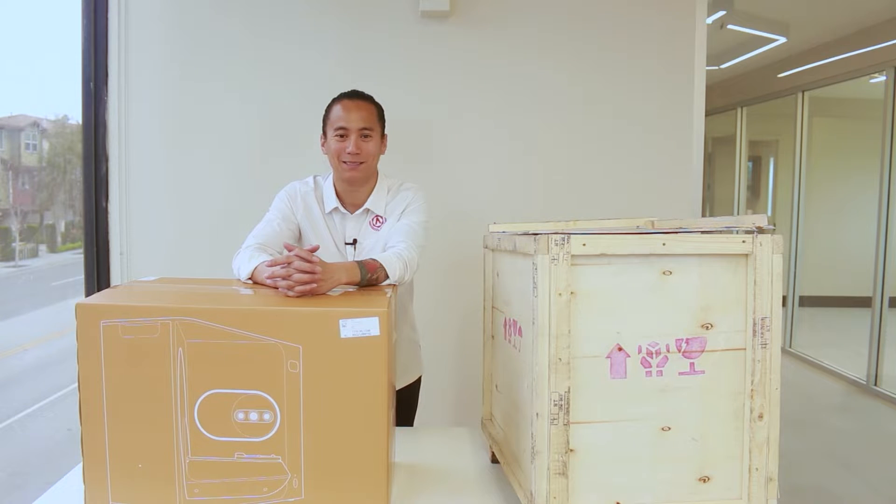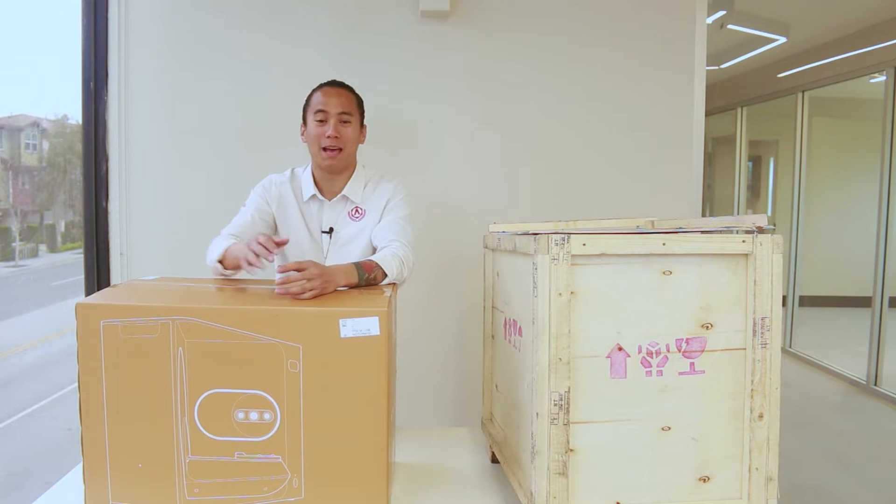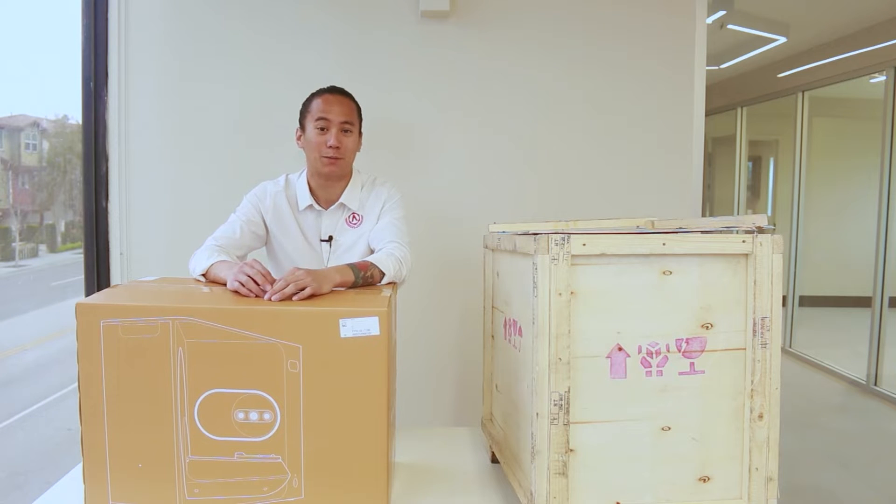Hey everyone, Andy here from Imagine Academy. Today we're going to be going over the Medit 710 scanner and everything that comes with your package.